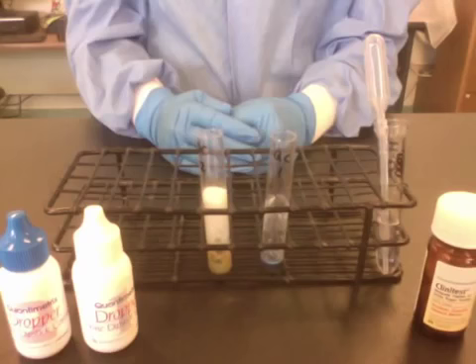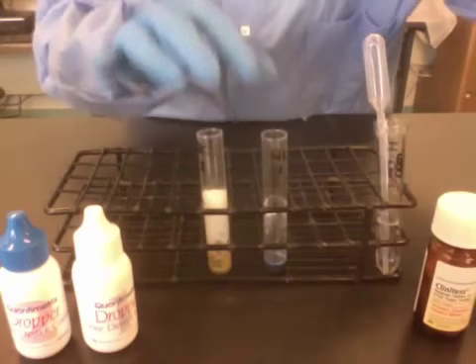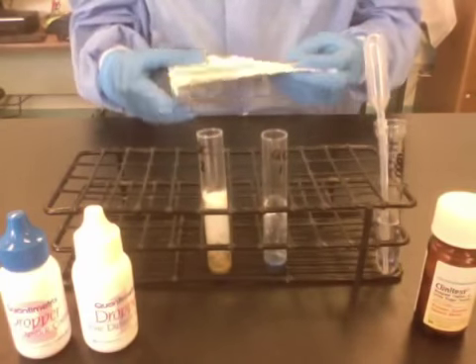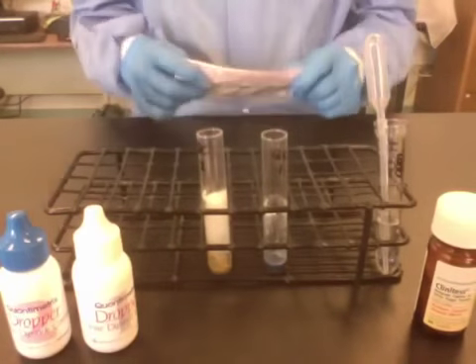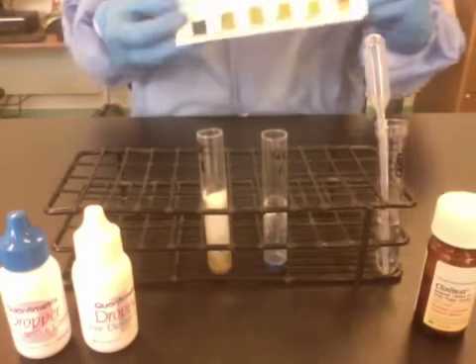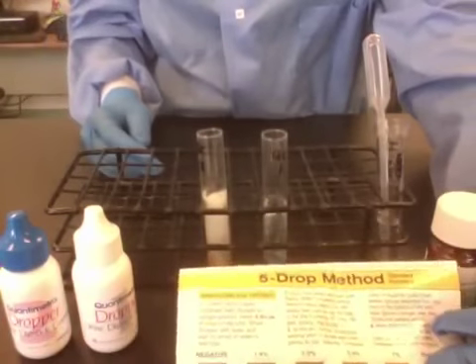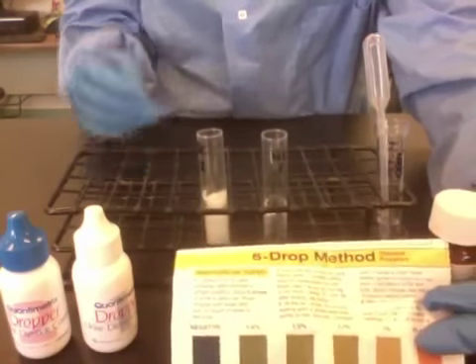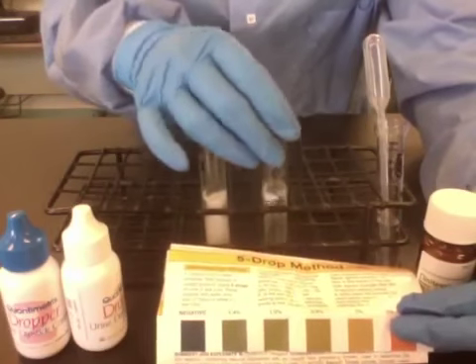Once the reaction is complete, you can read the reaction and compare it to the color chart in the package insert. Be sure to use the correct method color chart, as there are two different methods — a 5-drop method and a 2-drop method. We use the 5-drop method.